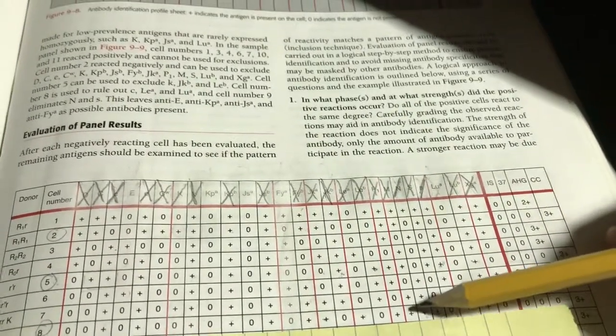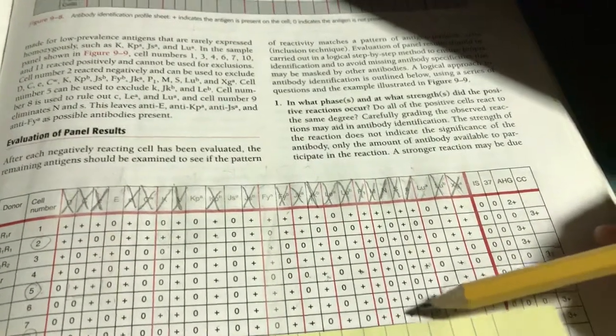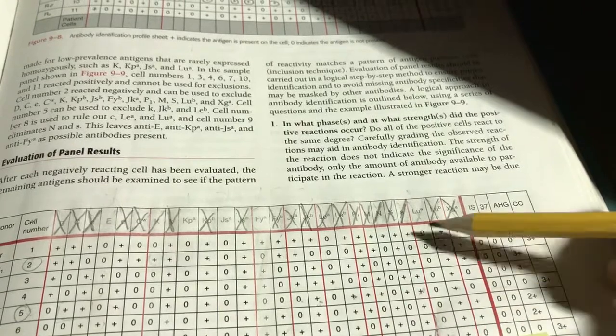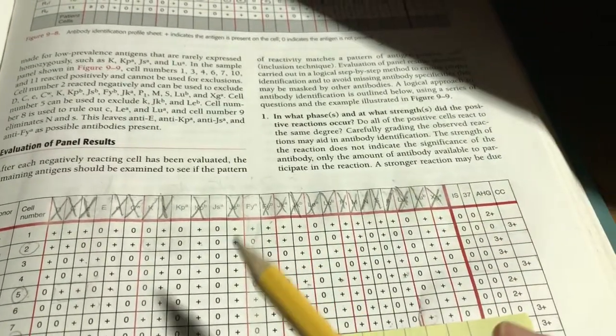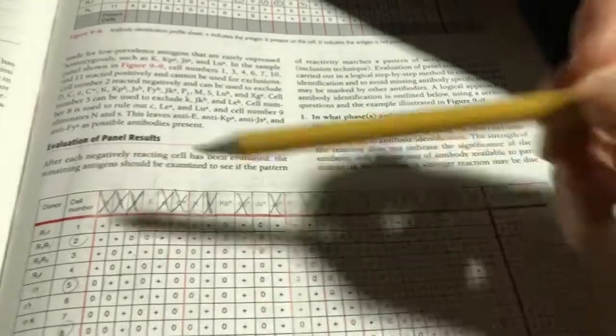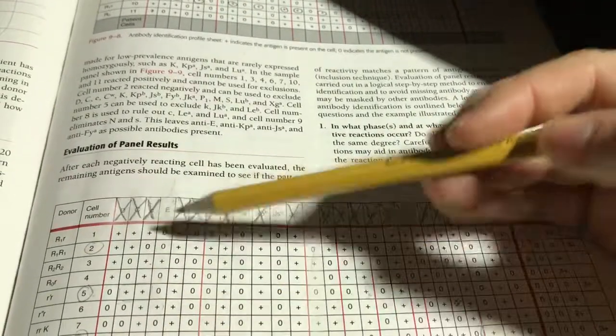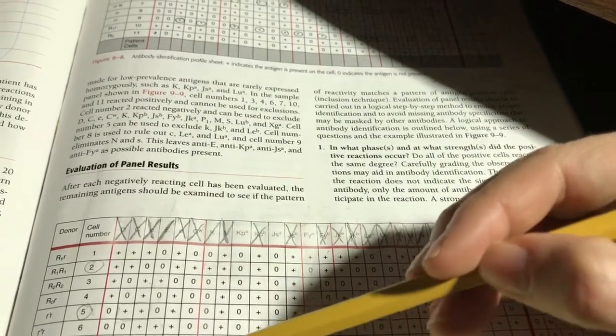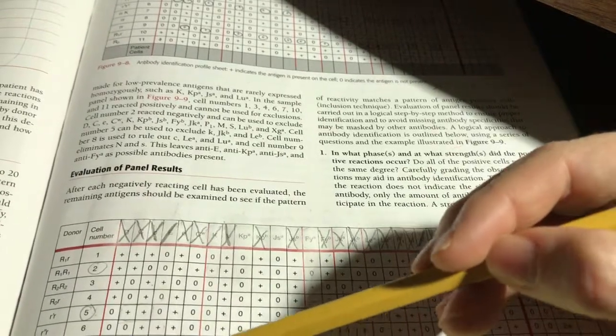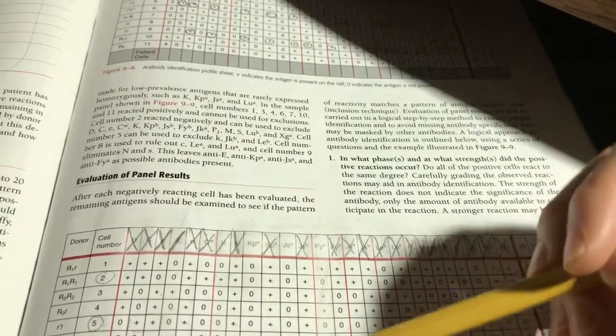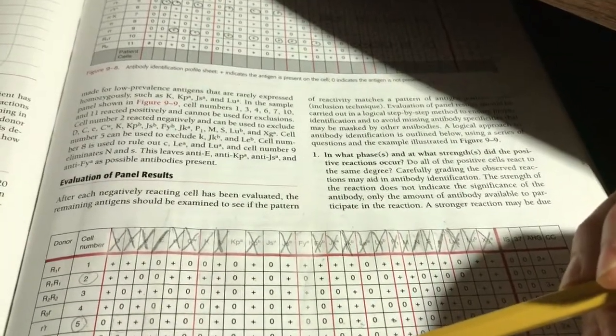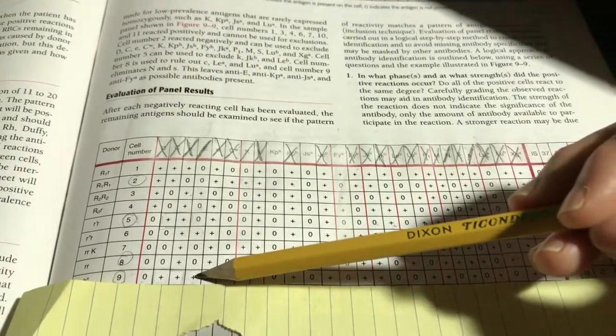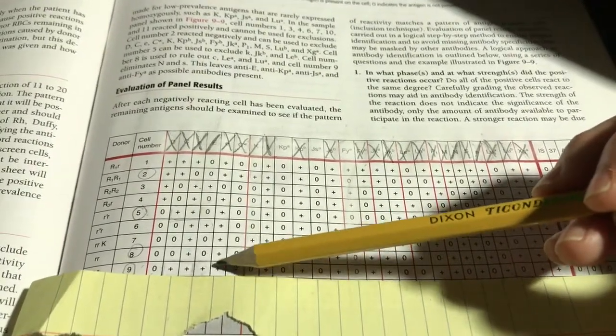Little S, I can mark off completely now. It's homozygously expressed. Again, as I'm going through these, if you don't see me going up here crossing them off, I'm looking at it and seeing they're already crossed off, so I don't need to do it again. Better to be conscientious than to start skipping around. N, halfway here. It's heterozygously expressed. The N antigen's present with the M, making the N not as strong.